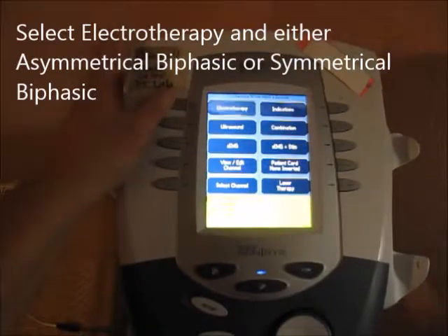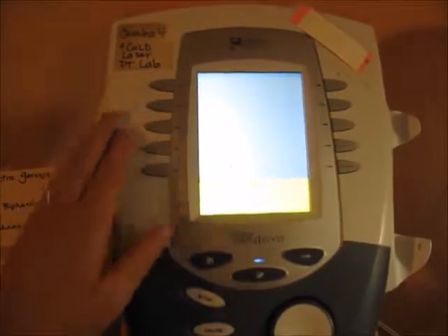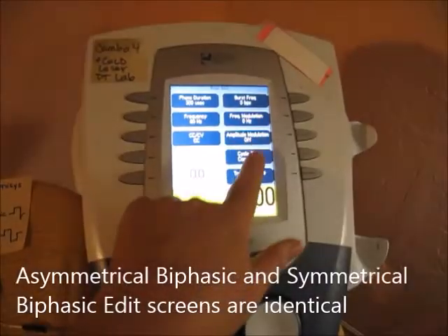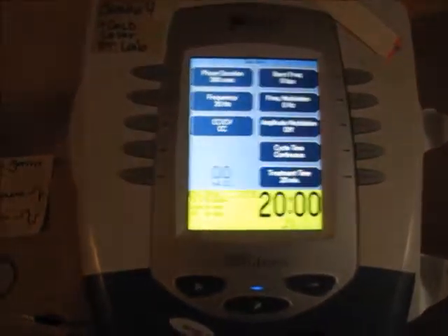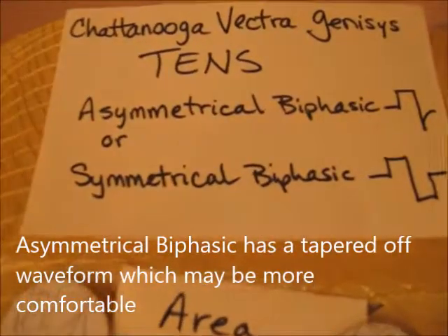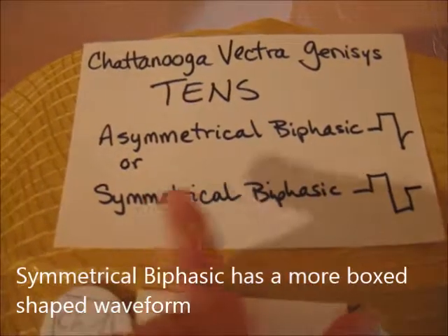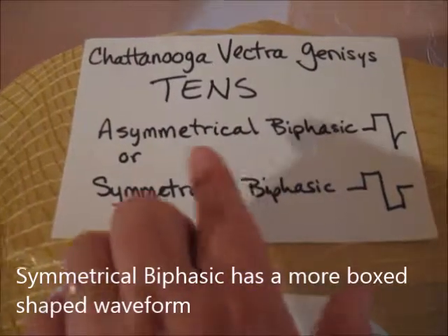You need to choose Electrotherapy and either Asymmetrical Biphasic or Symmetrical Biphasic. Both screens look very similar — they are identical in their setups. The only difference is that Asymmetrical Biphasic has a bit of a tapering off in the waveform, while Symmetrical is more of boxes. Supposedly Symmetrical is less comfortable than Asymmetrical.